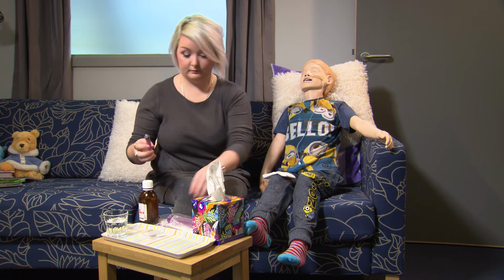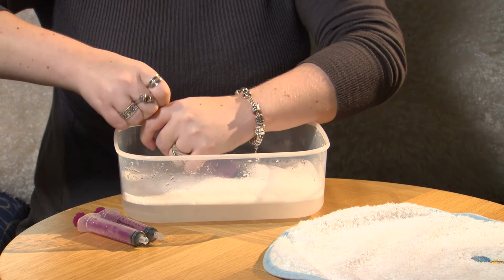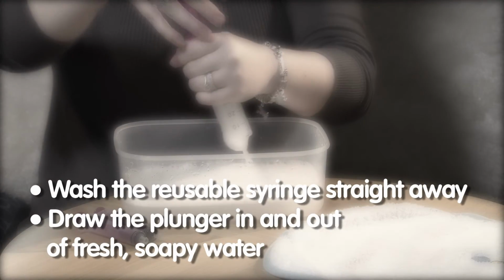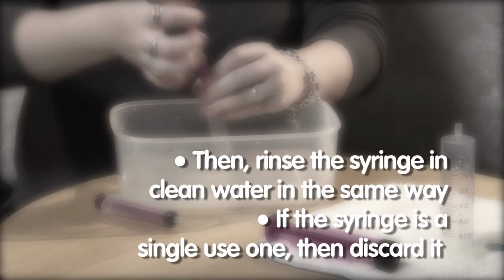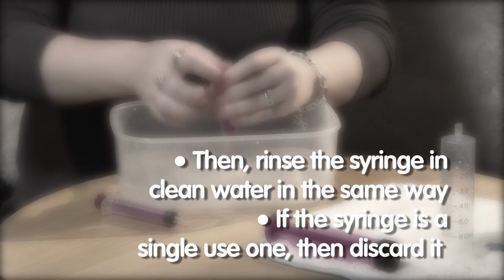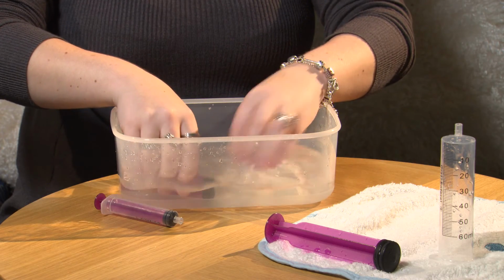If you are using a reusable syringe, once you have given the dose, wash the syringe straight away using fresh soapy water. Draw the plunger in and out in the soapy water several times. Then rinse the syringe in clean water in the same way. If you are using a single-use syringe, discard this.